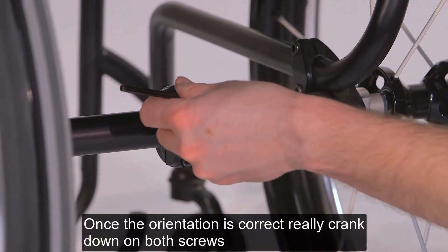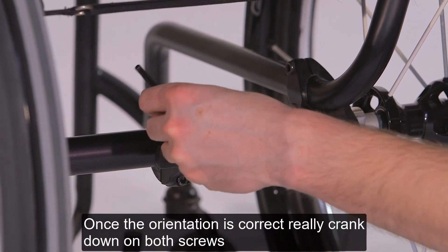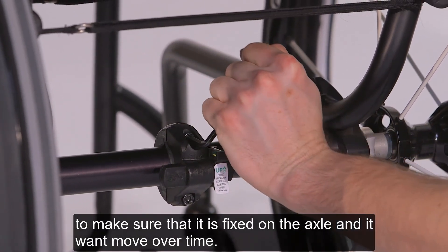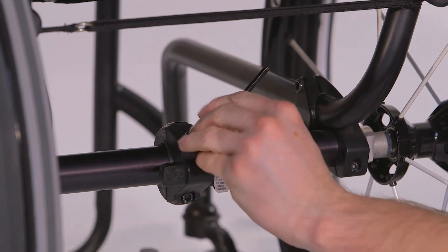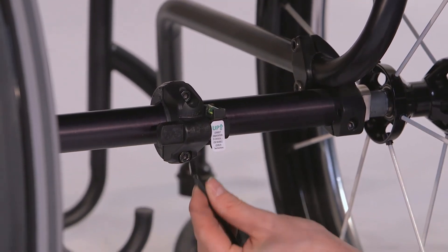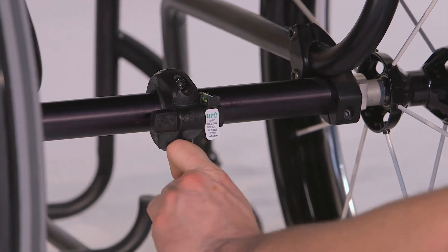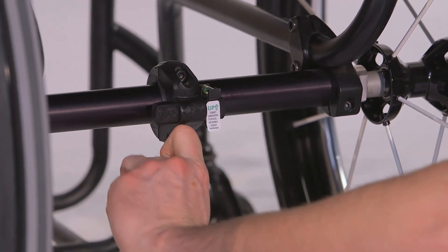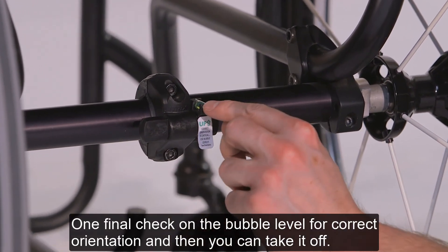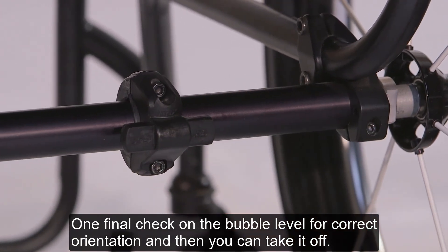Once the orientation is correct, really crank down on both screws to make sure that it is fixed on the axle and it won't move over time. One final check of the bubble level for correct orientation, and then you can take it off.